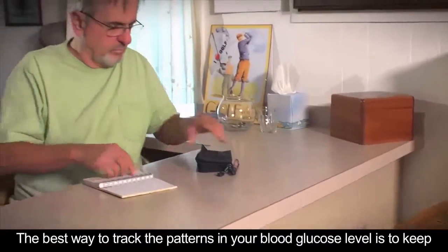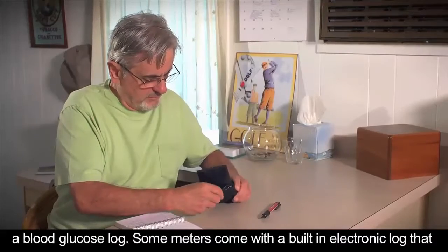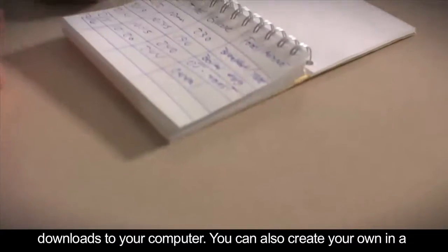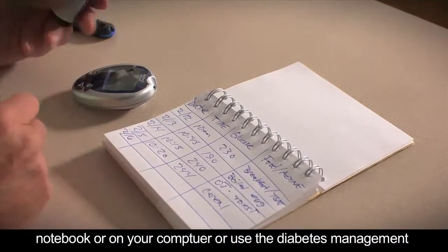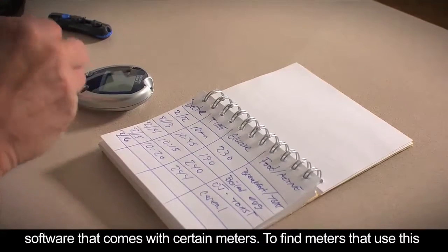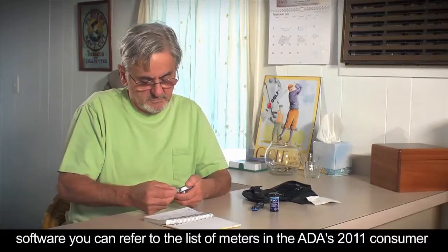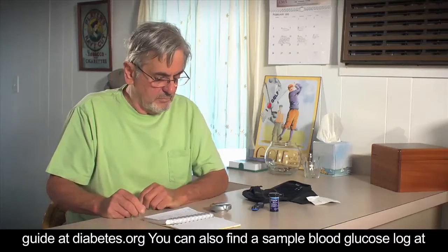The best way to track the patterns in your blood glucose levels is to keep a blood glucose log. Some meters come with a built-in electronic log that downloads to your computer. You can also create your own in a notebook or on your computer, or use the diabetes management software that comes with certain meters. To find meters that use this software, you can refer to the list of meters in the ADA's 2011 Consumer Guide at diabetes.org.